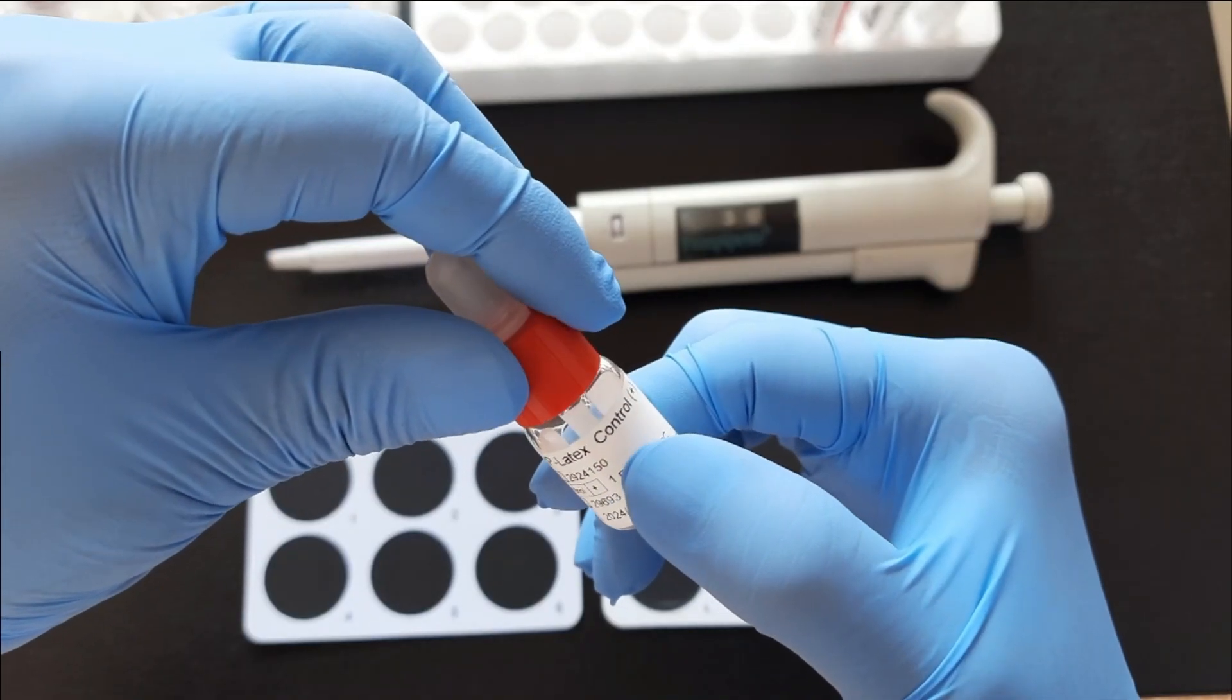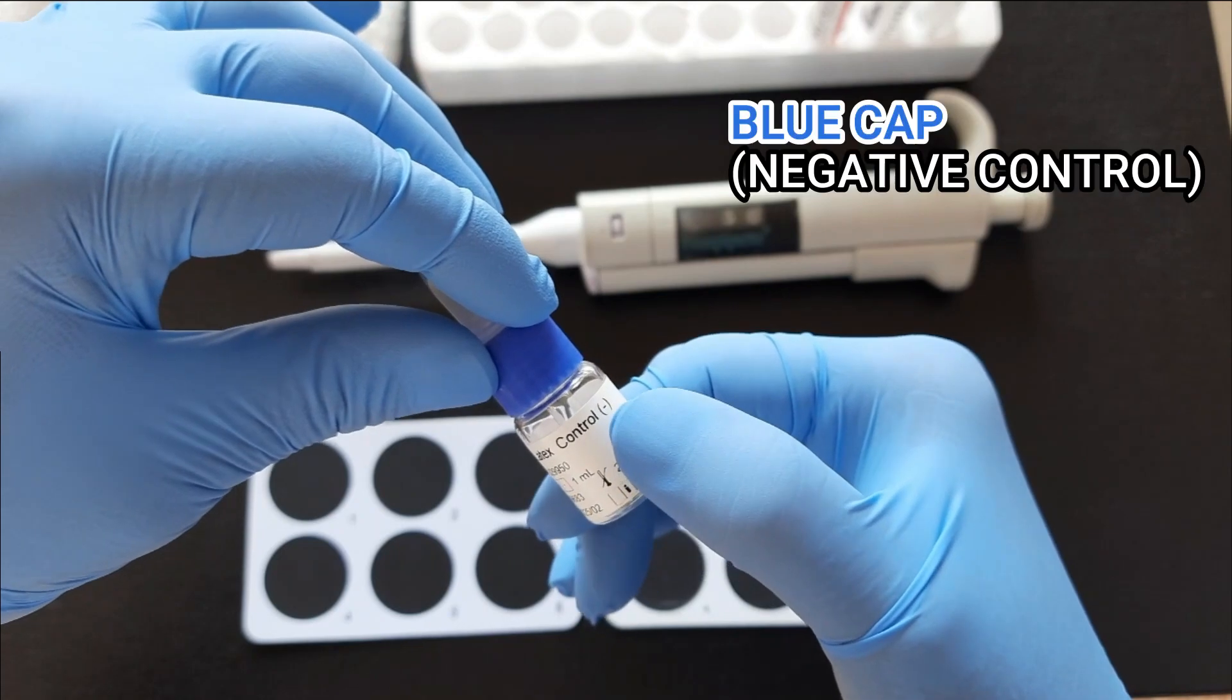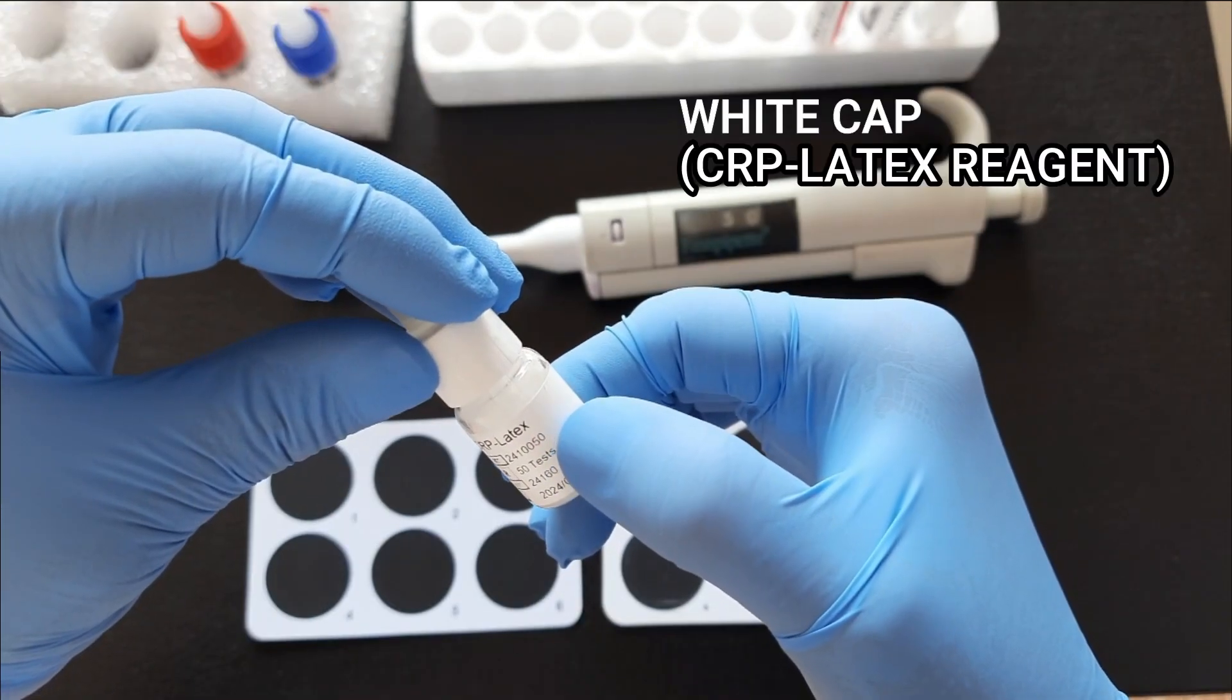The reagent set includes a positive control, a negative control, and a CRP latex reagent.